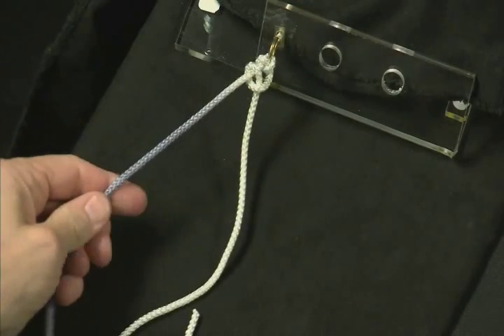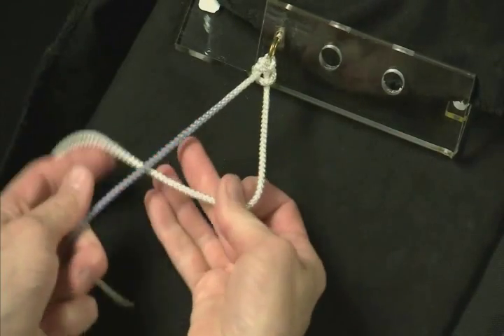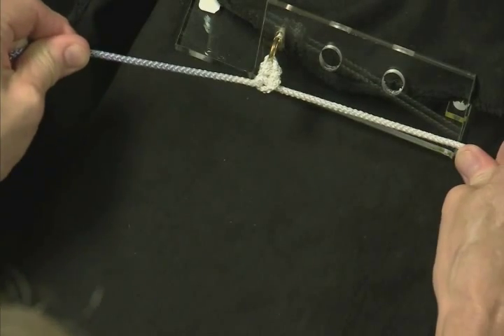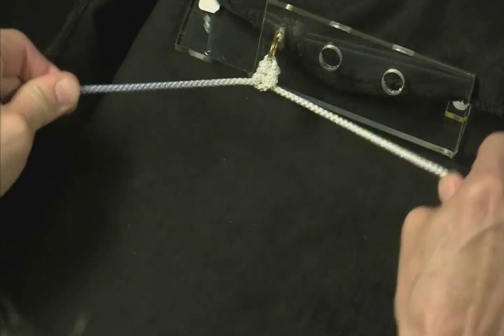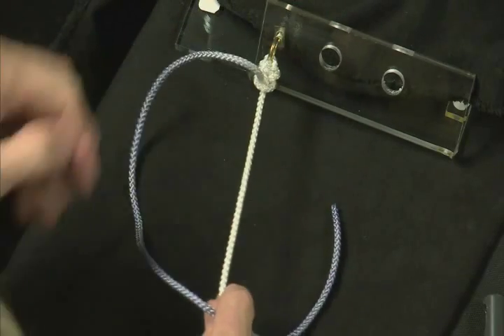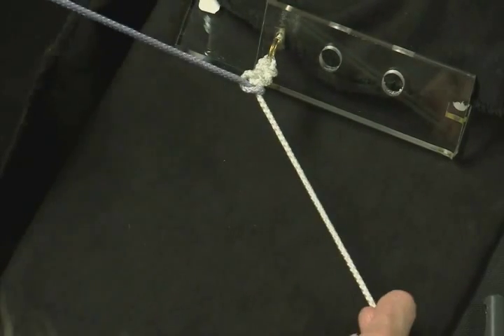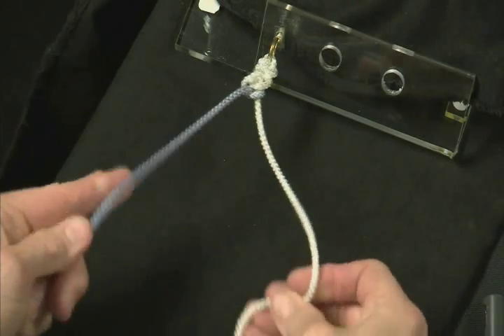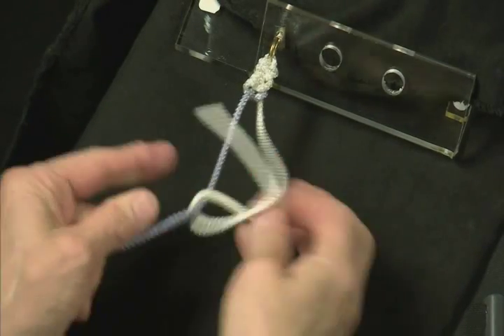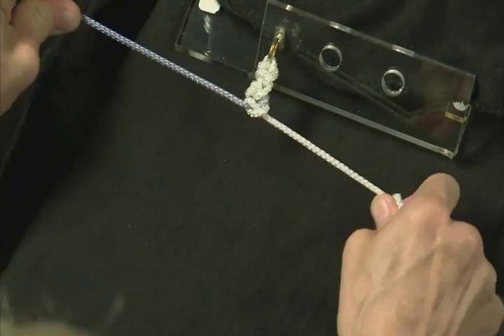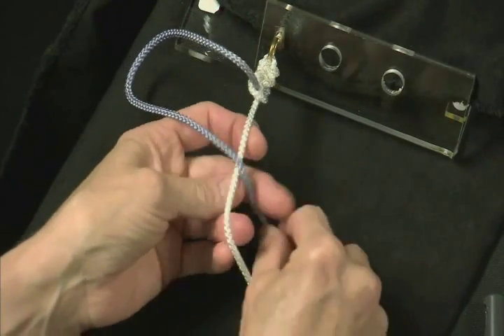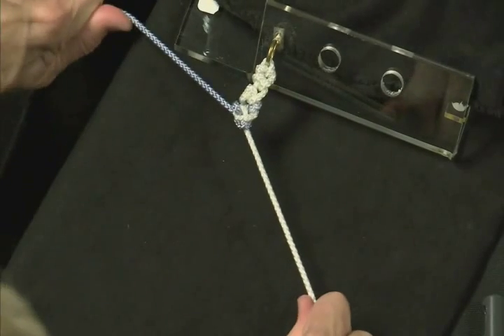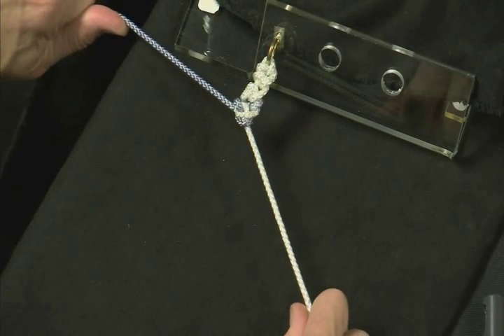And that's our base knot. And then we'll do reverse half hitches on alternating post, so we'll go over now. And now this is our wrapping limb, we'll go over there, and then we'll come under, switching our post back. And then we'll come over. And now we have a secure knot.